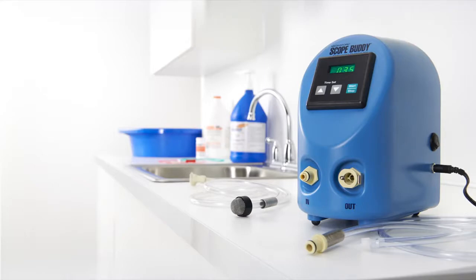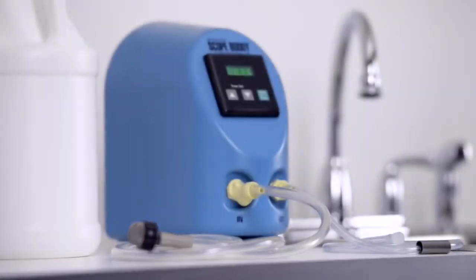ScopeBuddy automated endoscope flushing aid provides consistent, hands-free flushing of endoscope channels.